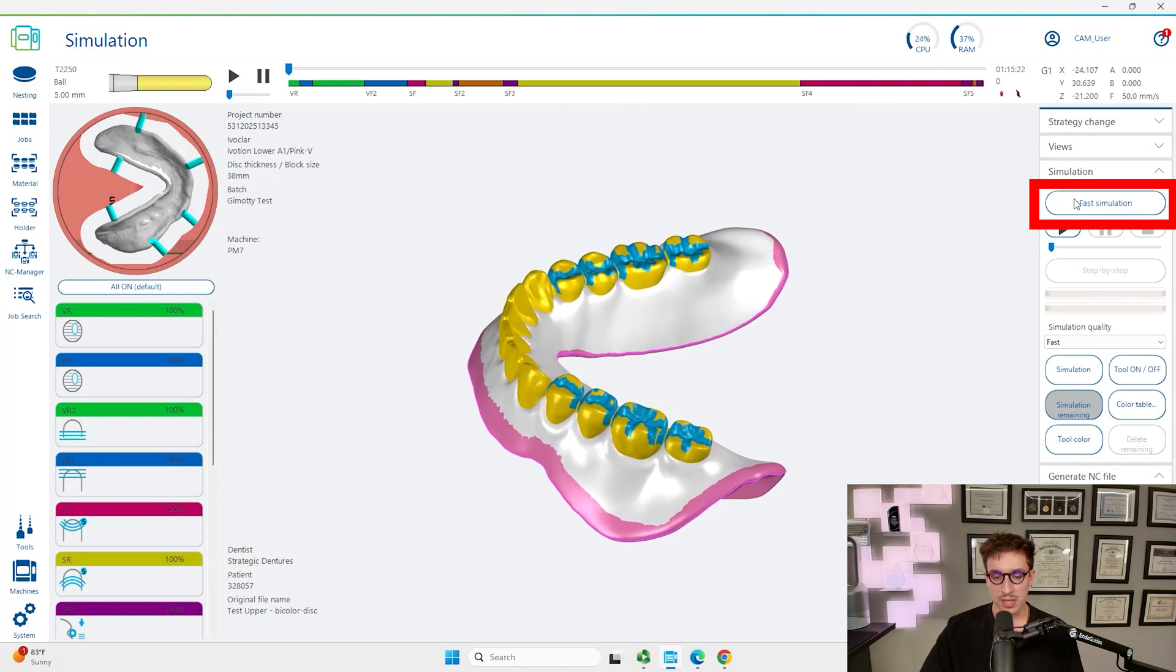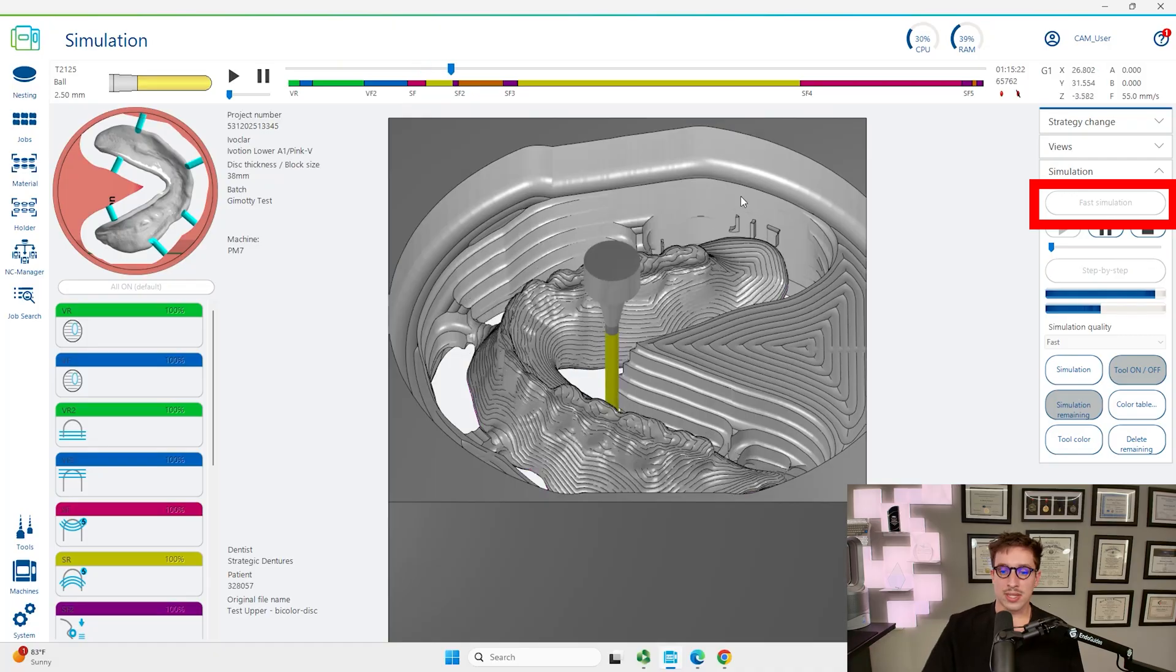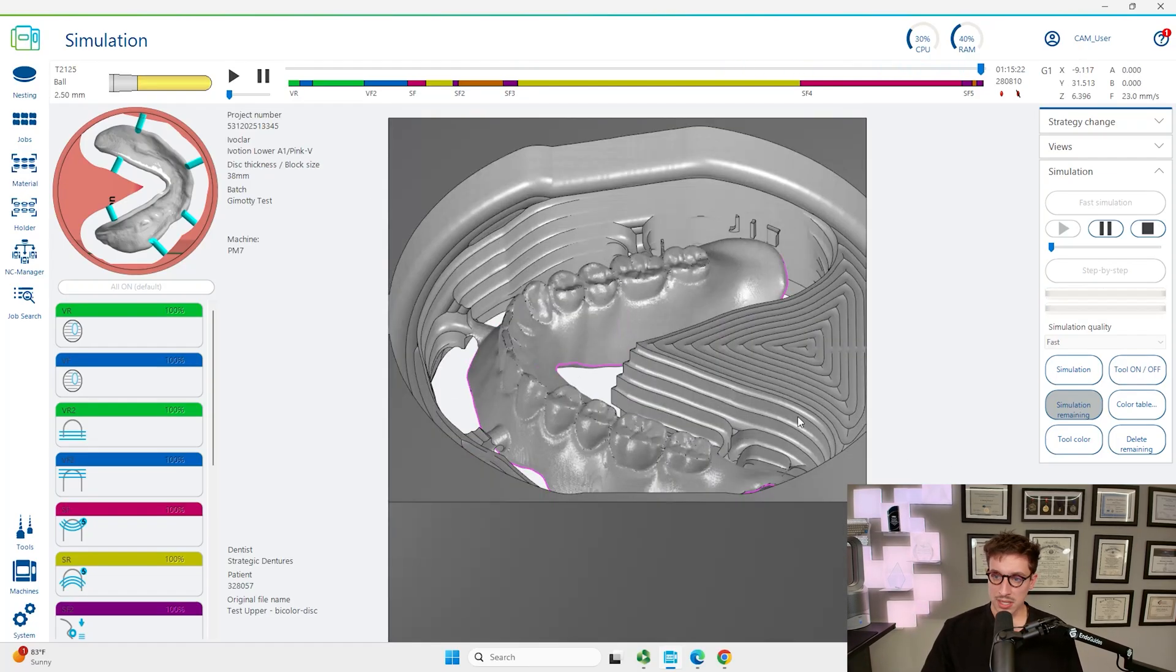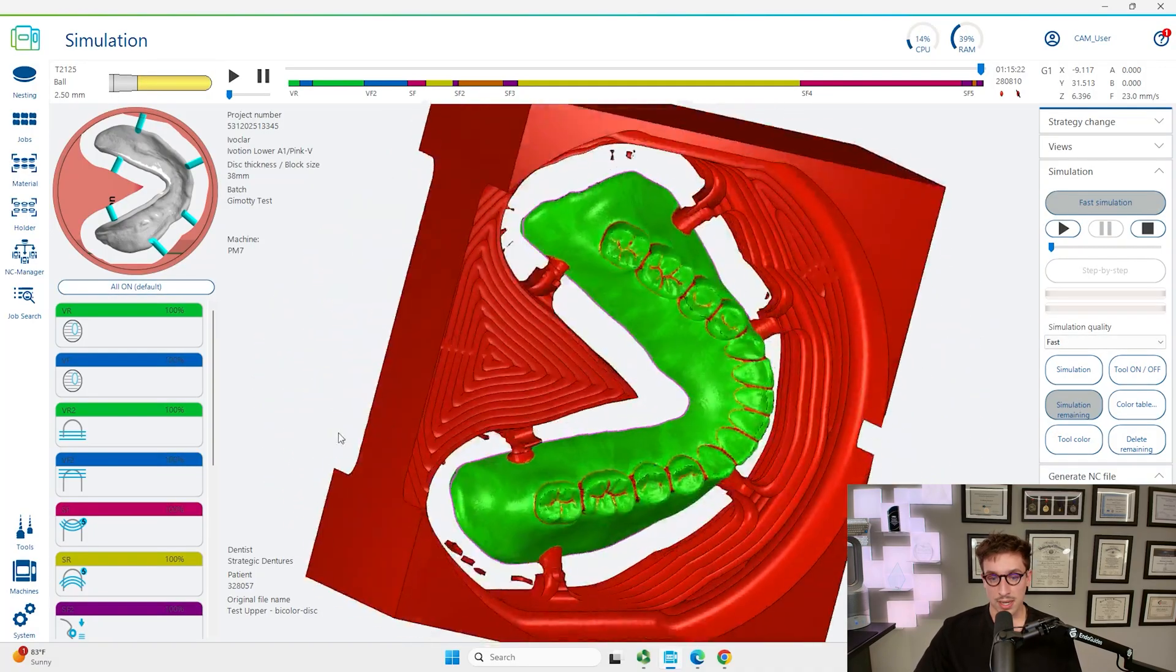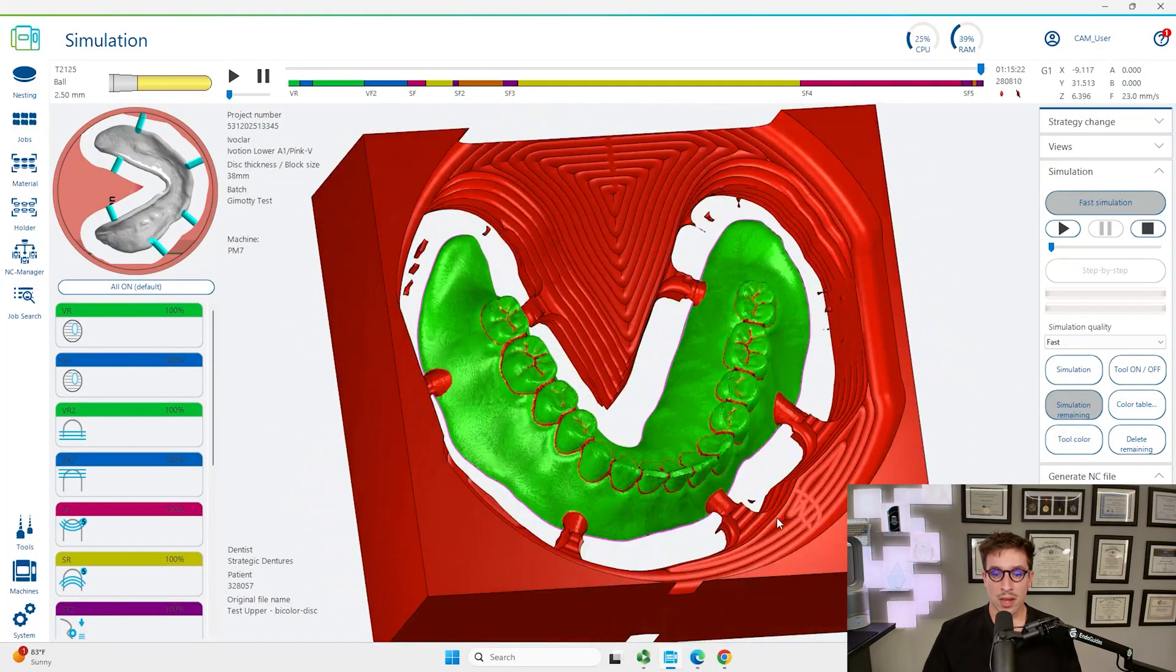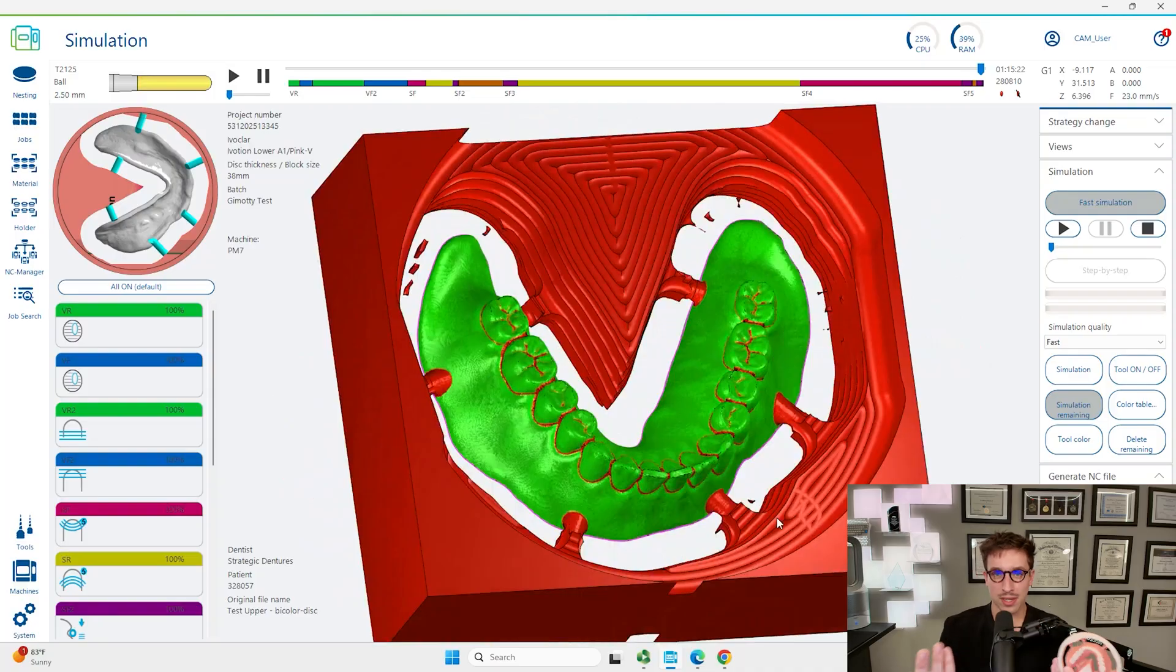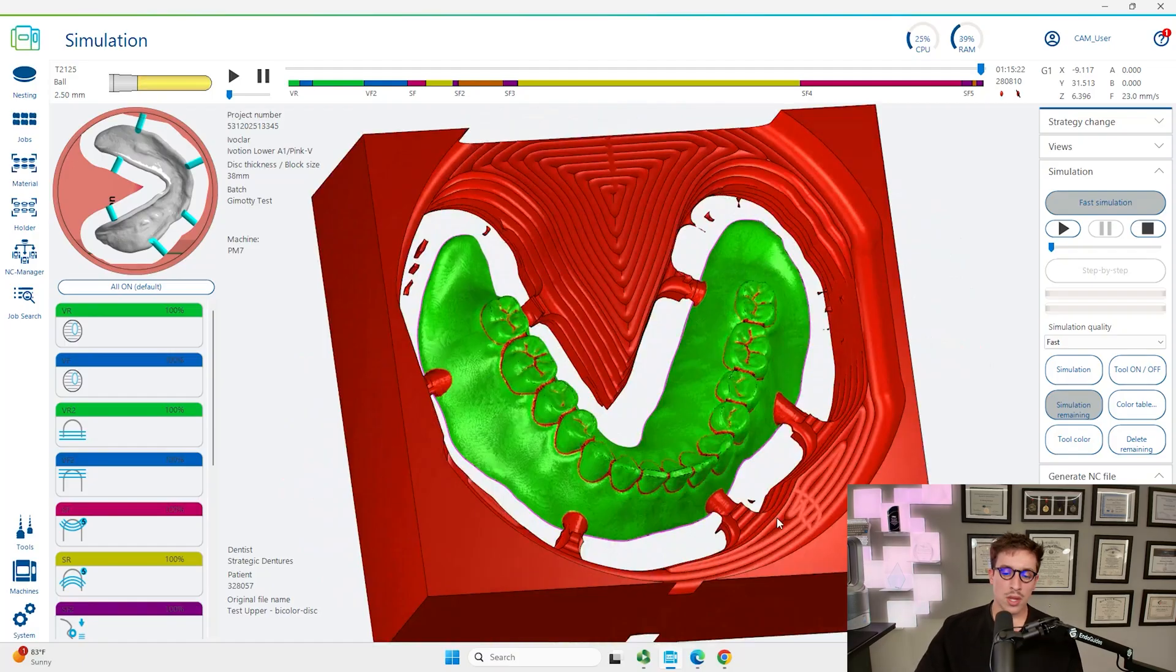We need to make sure that this plan is actually going to be accurate. We're going to click on view simulation up here in the top left, next to our start calculation button. We're going to hit fast simulation and this is going to simulate all of the different burrs and all of the different burr movements. You can see for this one we're looking at about 280,000 individual movements. This is what we're looking for, you can see the green and the red. The red is generally going to be bad. Red means that the area it's trying to mill is too small for the actual burr. Our burr is 0.5 millimeter, so anything less than 0.5 millimeters we're not actually able to get in those areas. You're always going to see those red areas around the teeth because of the embrasures and anatomy. What we're looking for is any sort of red areas on the intaglio surface or large undercuts. We didn't see any so we're good to go.